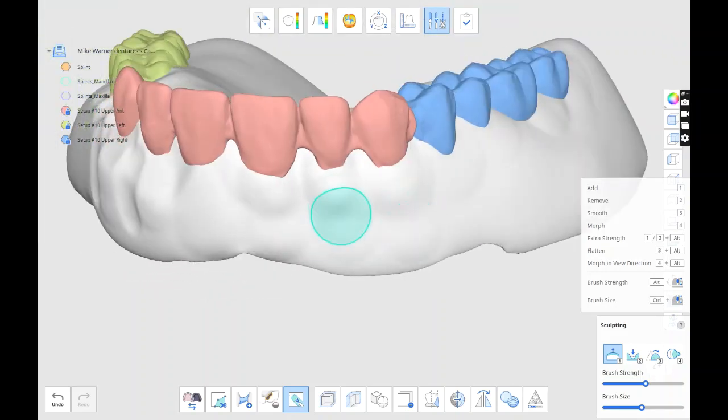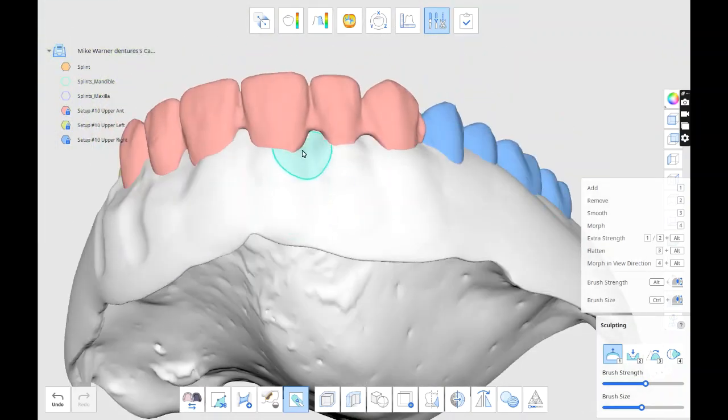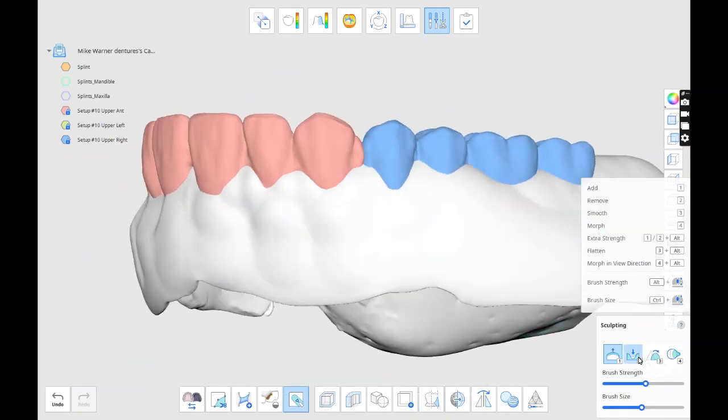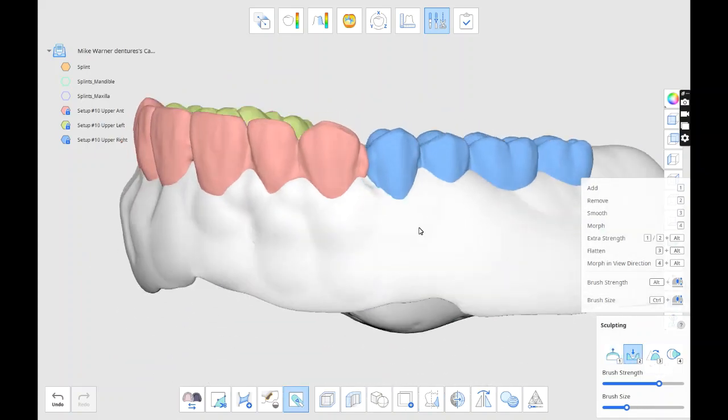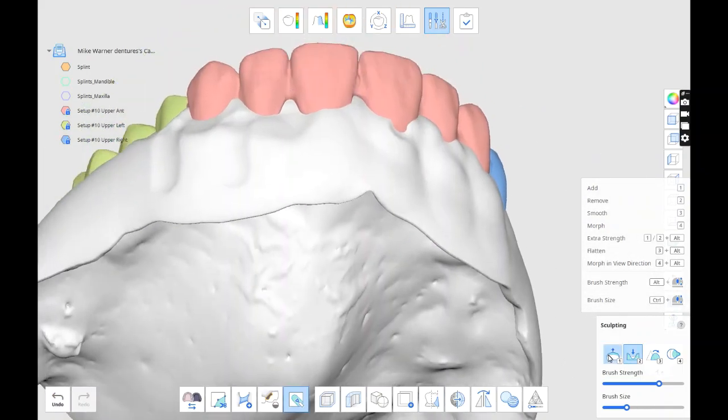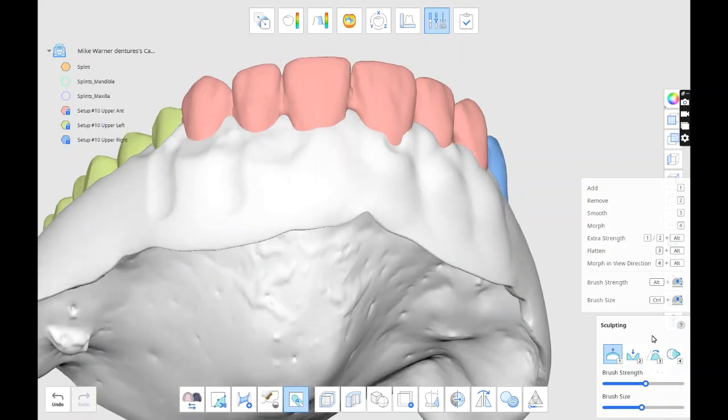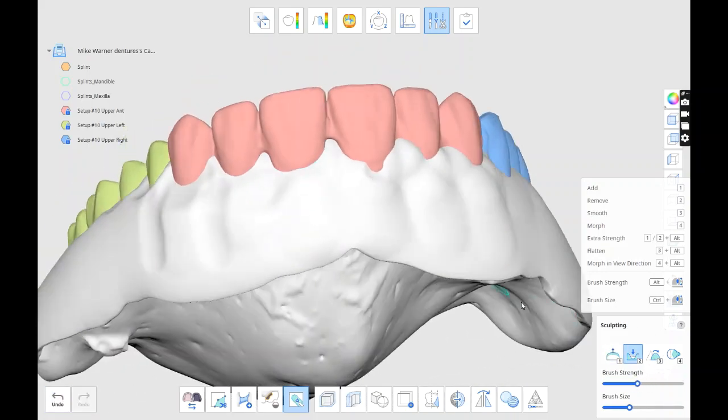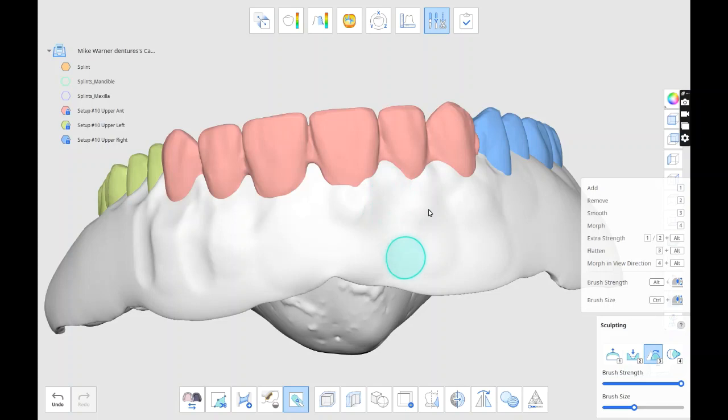I do like the simplicity of this. If I wanted to, I could have brought the lower opposing jaw and done two dentures. Here he's going to have a partial on the bottom, but we just need him teeth for Monday, so pretty quick.